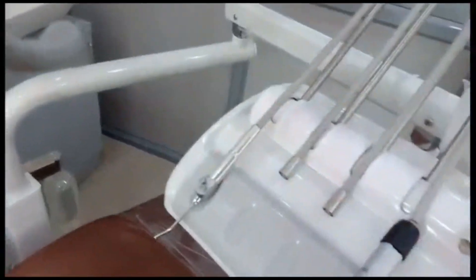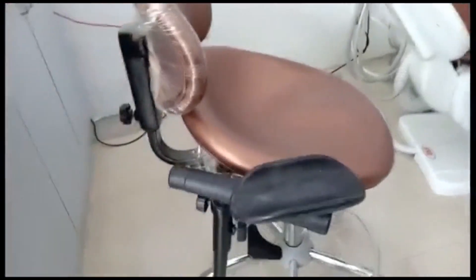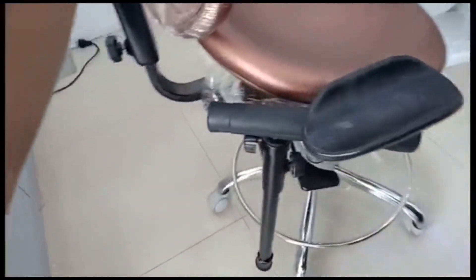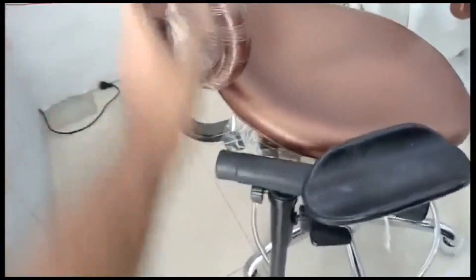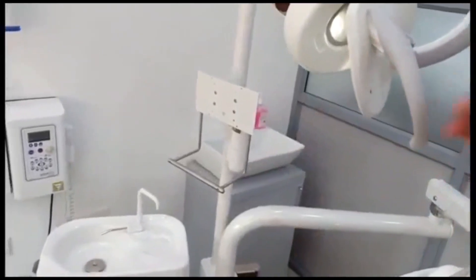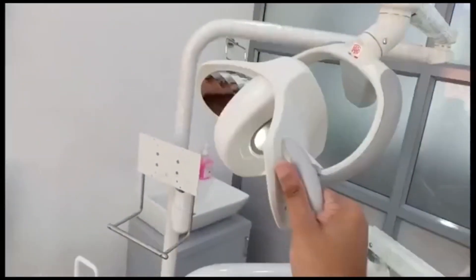This is the dental stool where the dentist is seated. It has wheels at the base so it can be easily moved by the dentist while seated. This is the light device — we can change its position by rotating it, and it is easily rotatable.